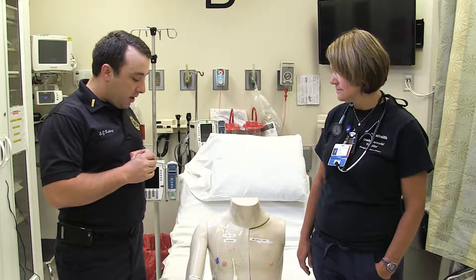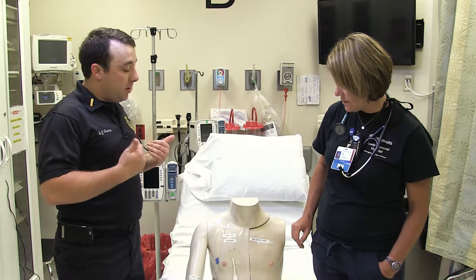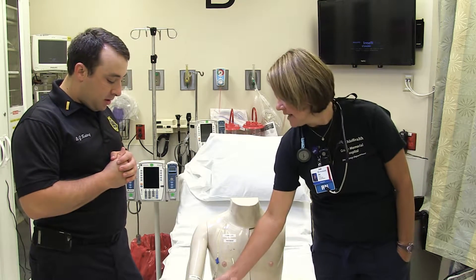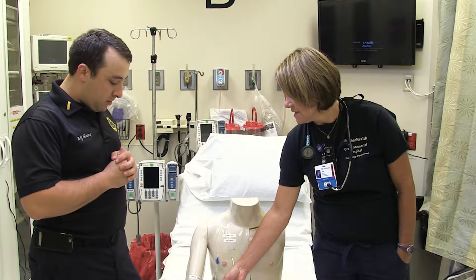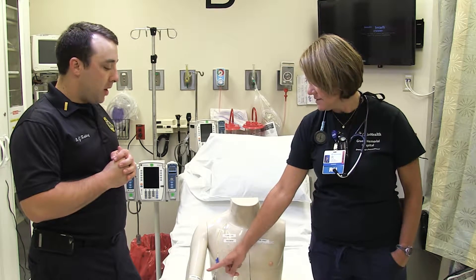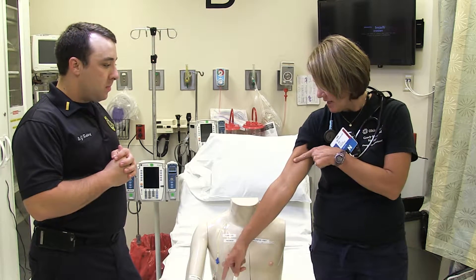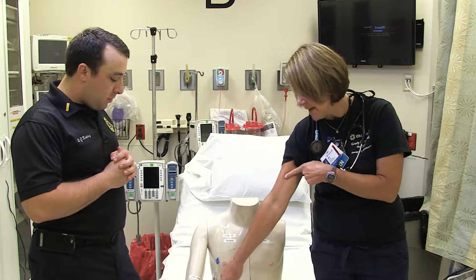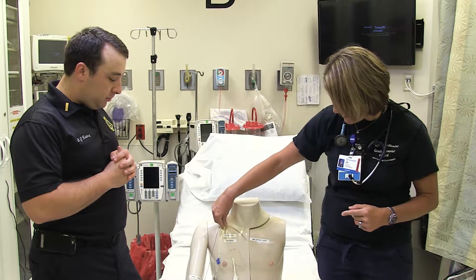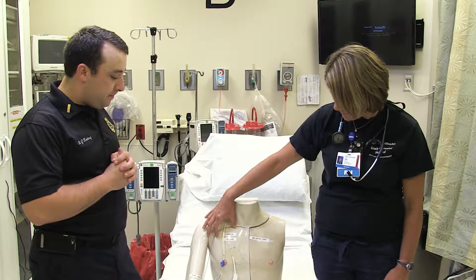What are the common ports we see on patients that get discharged and that we might have to run on? The majority of the time, PICC lines. PICC lines are peripherally inserted central catheters. This one's actually showing it pretty low — typically a PICC line is going to be right about here. Same thing, it tunnels all the way up into the superior vena cava and into the heart.